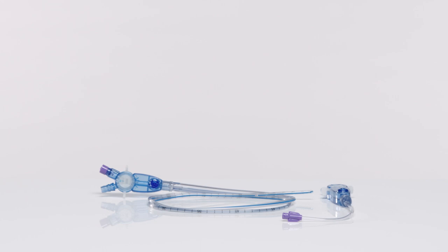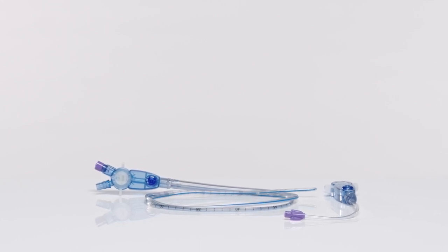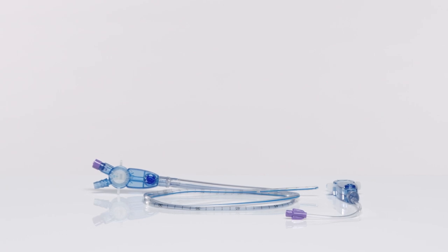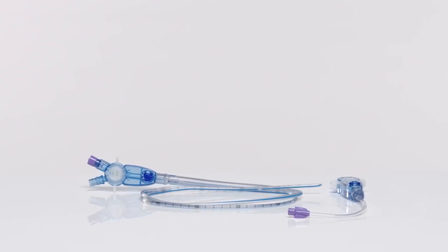The Kangaroo Salem Sump with Multifunctional Port with EnFit Connection is a medical device that health care providers can use to safely decompress a patient's stomach contents, administer enteral feedings, and irrigate.